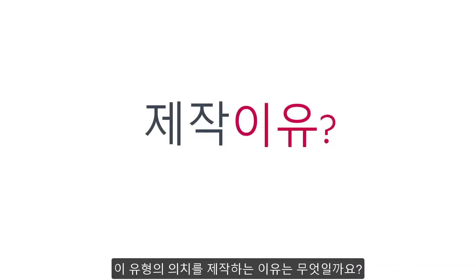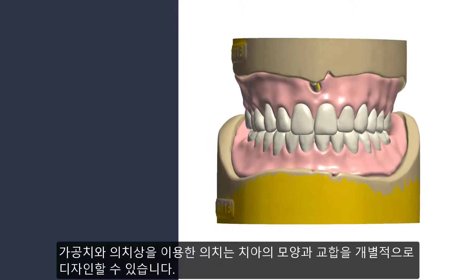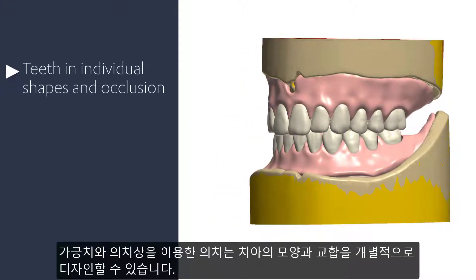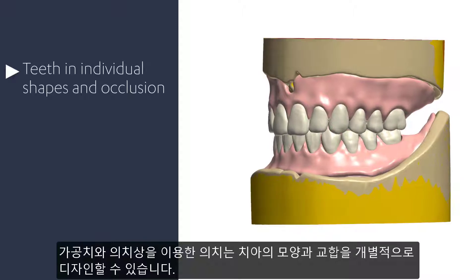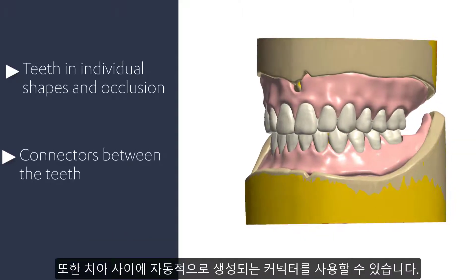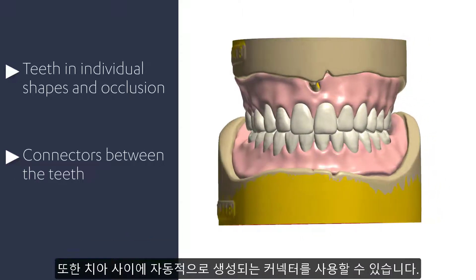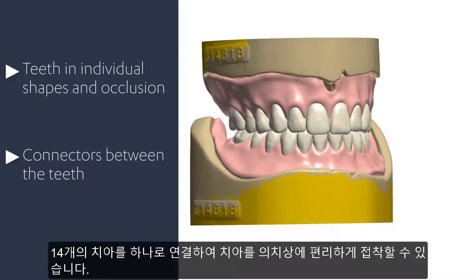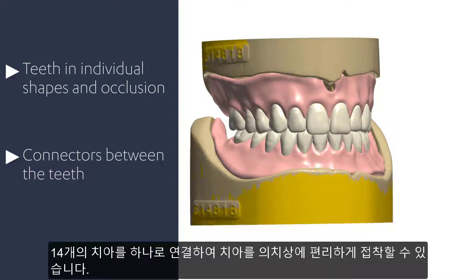So why would you produce this type of denture? This type of denture gives you the possibility to design teeth in individual shapes and occlusion, and you will get automatically created connectors between the teeth. It's much easier to glue a few bridged teeth instead of 14 teeth.